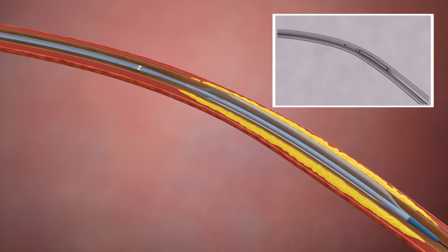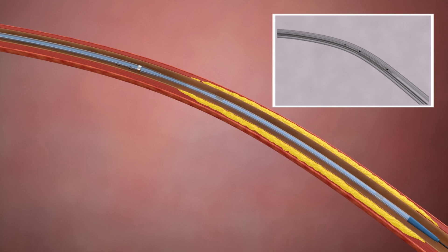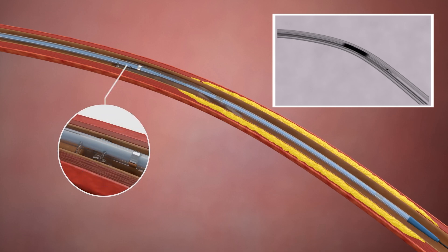After the lesion is treated, the catheter can be retracted to perform completion angiography, or even performed with the deflated balloon left in position.